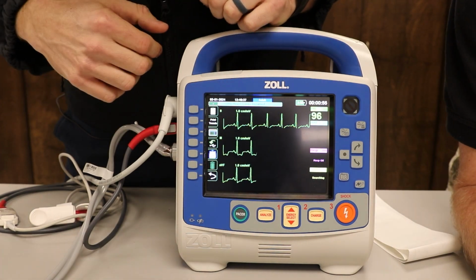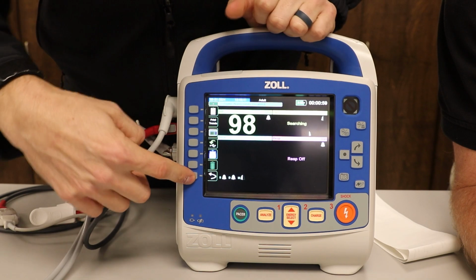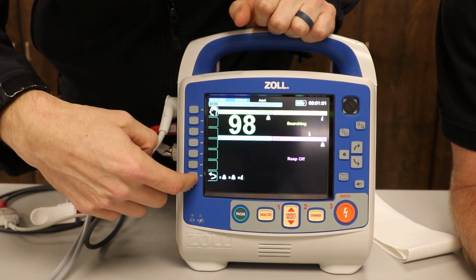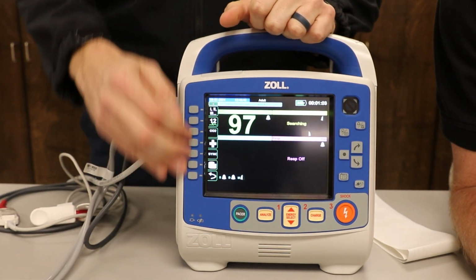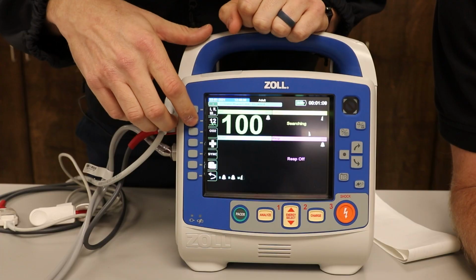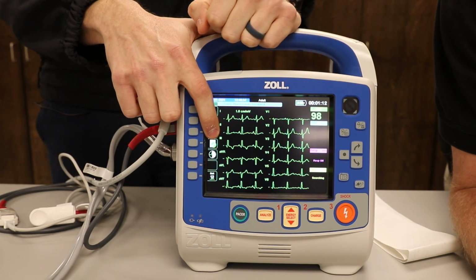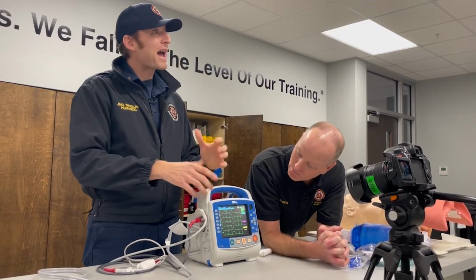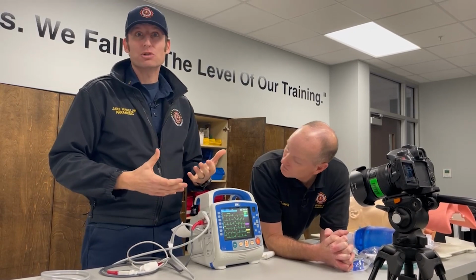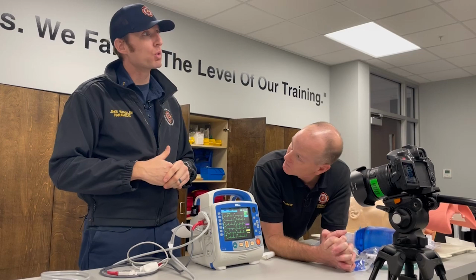There you go. There we go, Dave. All right. So now we're going to go back to home. No, never mind. Hit this arrow. Hit this arrow until you're back to this default view. We have all these options here. We're going to select the 12 lead button again. And if you look at that piece of paper with a check mark, this stores 12 leads. There's a massive bank. A lot is the answer that I have right now. It'll eventually lose the 12 lead over time, but I will tell you it stores a bunch.